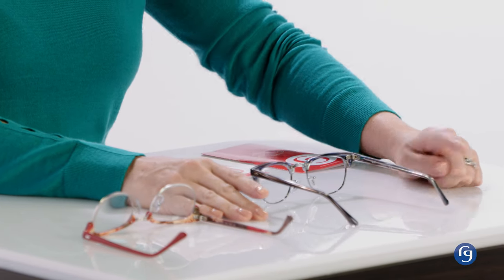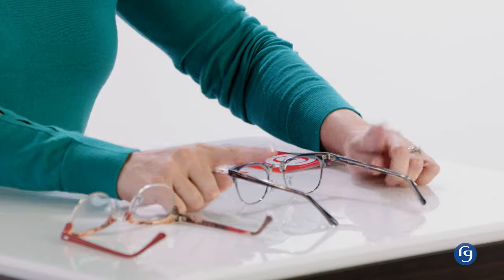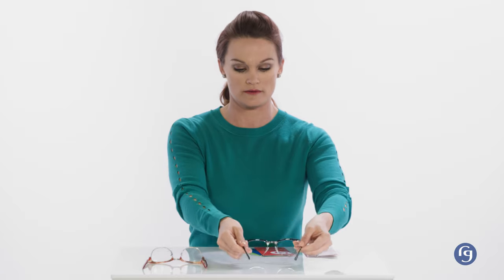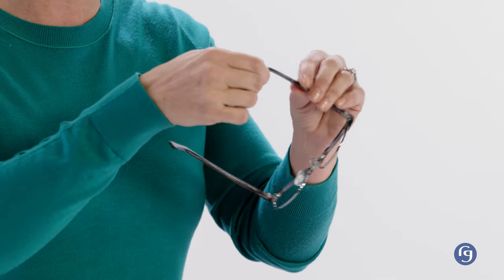What happens if there is a little wobble? Let's take this pair, for instance. If I set these down on a flat surface, I can already tell there's a wobble here, and that's because they're meeting in three places, not four. So if there is a little wobble, you're going to hold the glasses firmly and gently bend the temple on the inside where there's a gap — just gently until it sits flat. Small increments are best. Most people don't know this, but most temple arms include a wire core, which allows for minor adjustments. Make sure when adjusting the temples to isolate any stress from the hinge area, focusing on just the point where you want to affect the change.